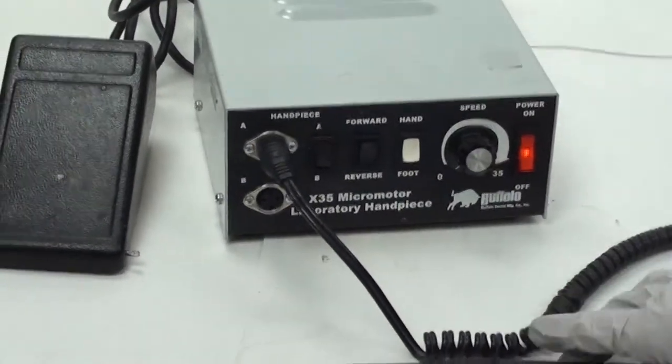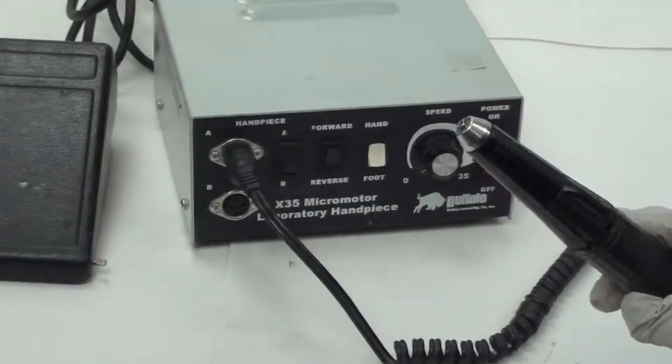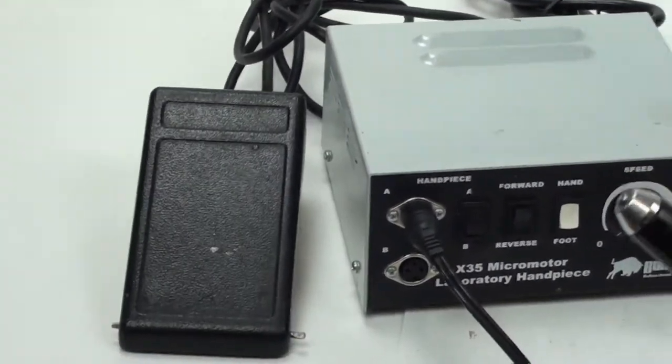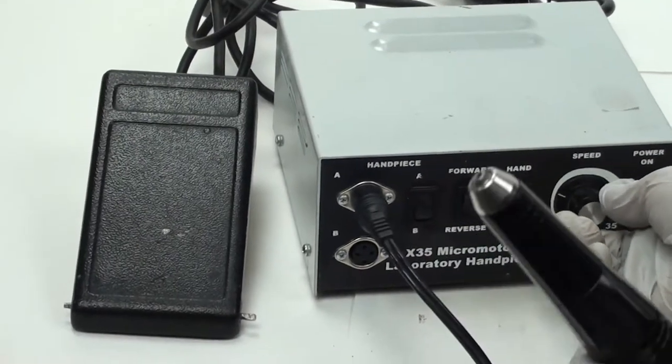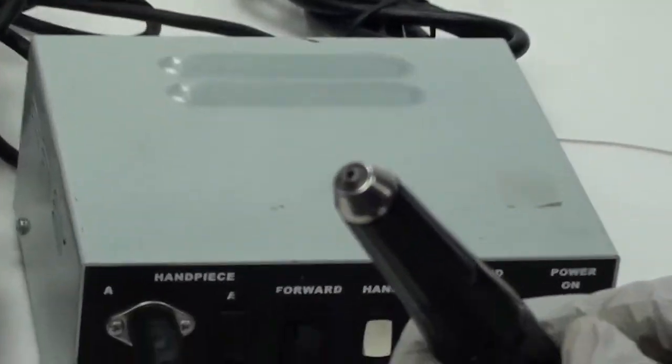This is in great working condition, so is the pencil grinder. I'm going to show what is the issue with our foot pedal. Let me go ahead and amp up the speed. As you can see it's going.